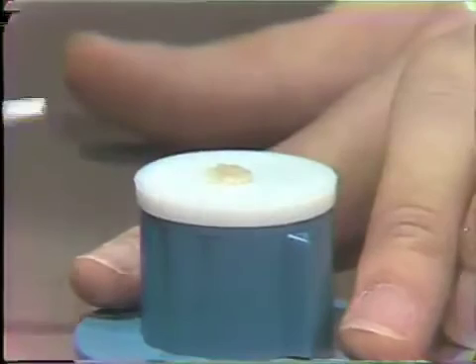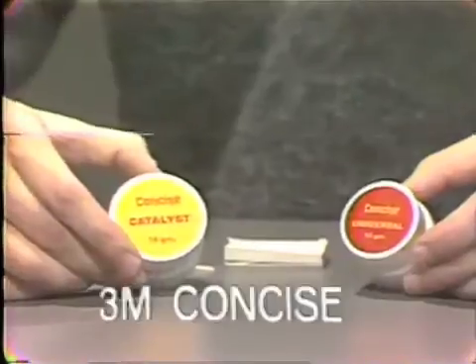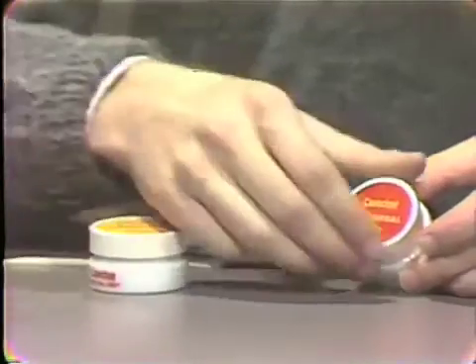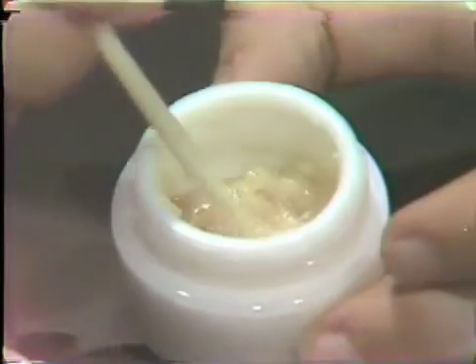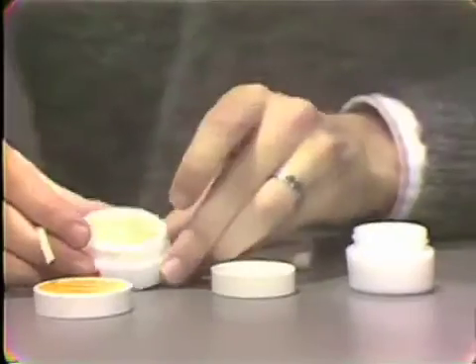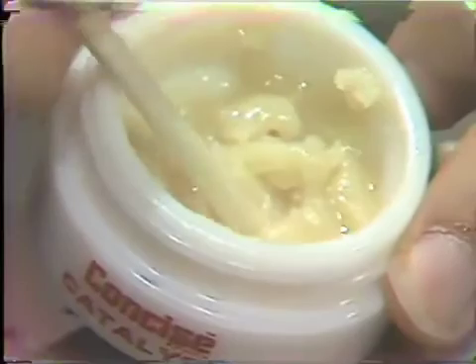The mix is now ready for insertion. Concise, made by the 3M company, is a two-paste system. The universal shade comes as a paste with a similar viscosity. The catalyst is likewise a paste with a similar consistency.